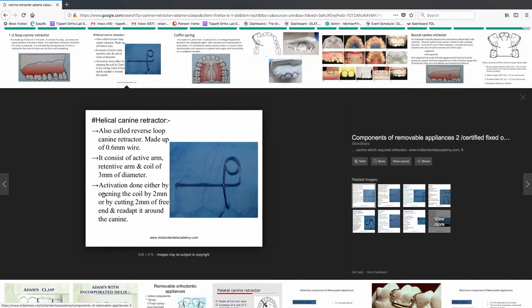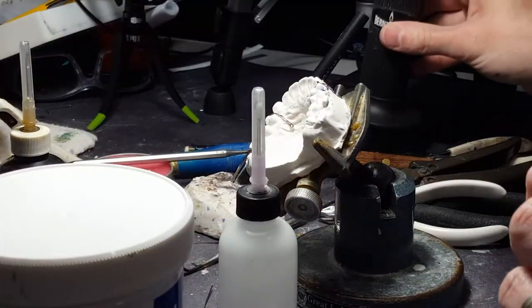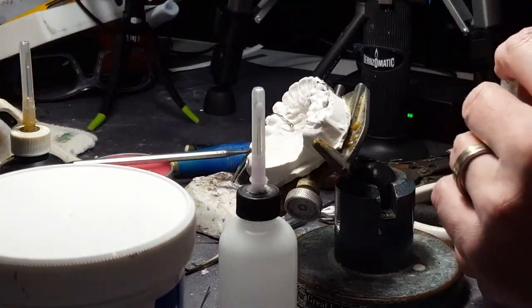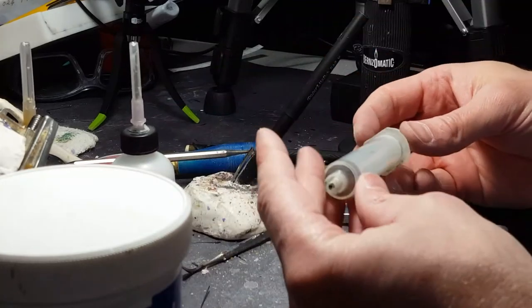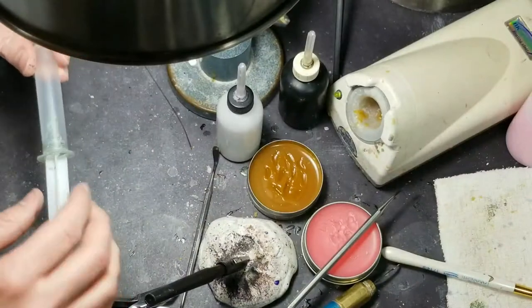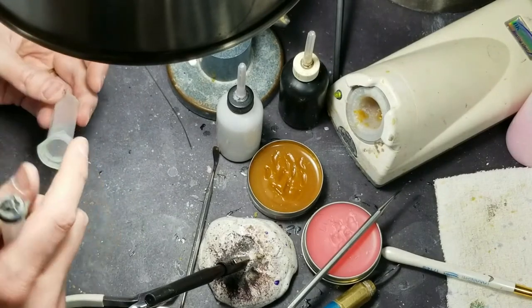So now I'm going to show the soldering part. I'm going to get my flux out, my heat shield, my flame, and my solder. This is something I like to do with these soldered canines — put my heat shield in here. I have an old video of me showing how to do it. If you do a bunch of these at once and you solder them all at once, it's good to have this.